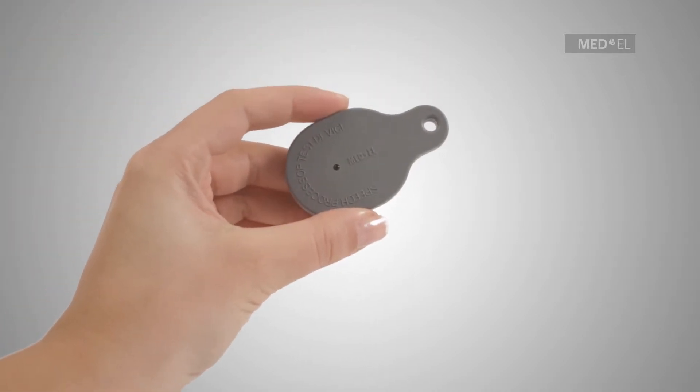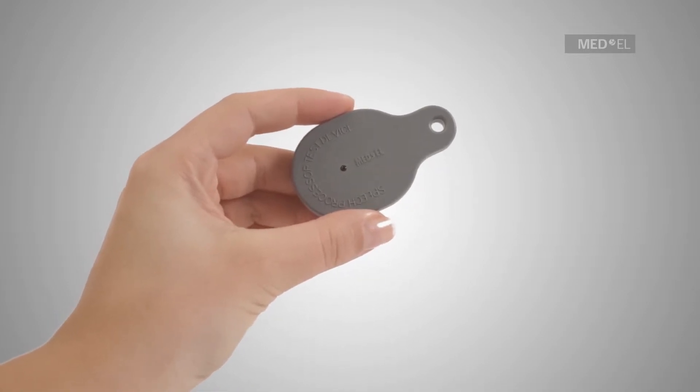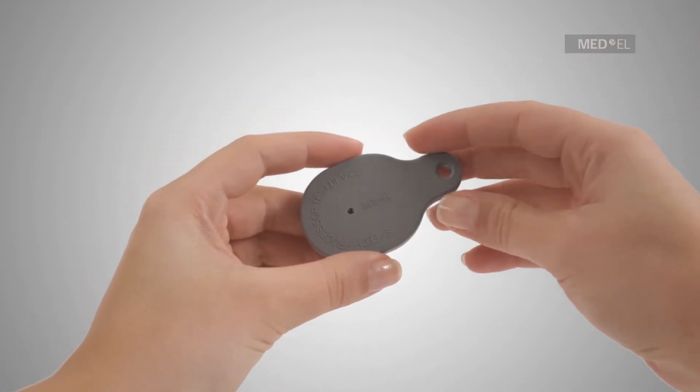The Speech Processor Test Device is a simple tool that may be used to troubleshoot the most common problems encountered by users and caregivers interacting with the RONDO Audio Processor.